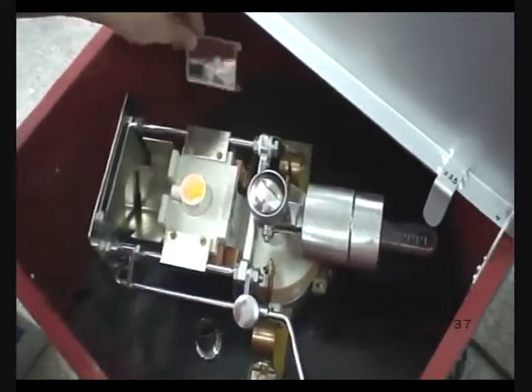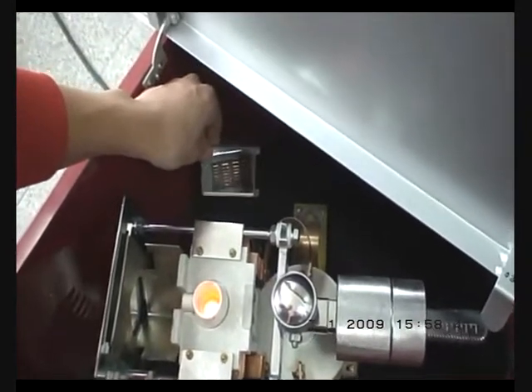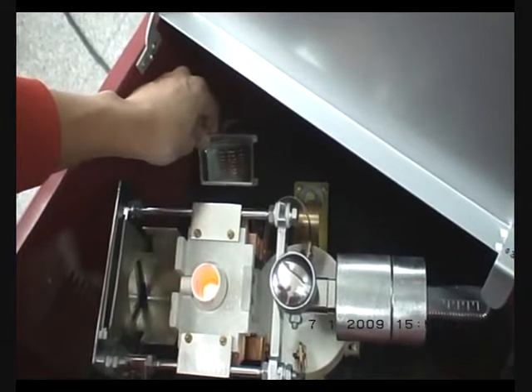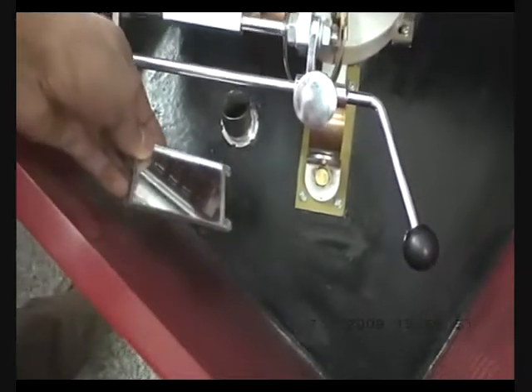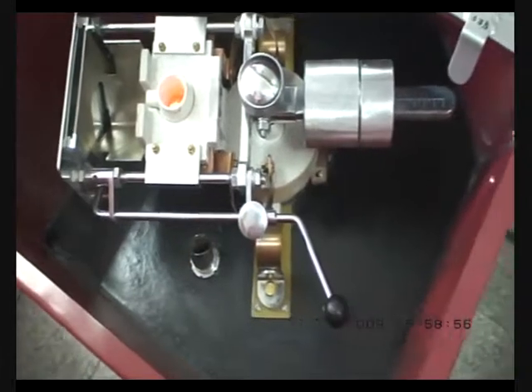After some time of use, sometimes the metal parts may touch each other. You have to use a mirror to look inside and see whether the copper parts are touching each other. If they are touching each other, there won't be any ampere reading.